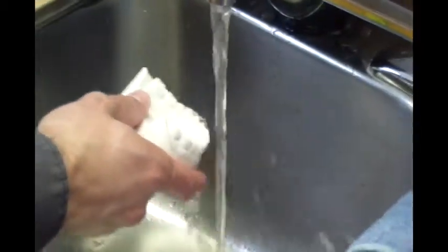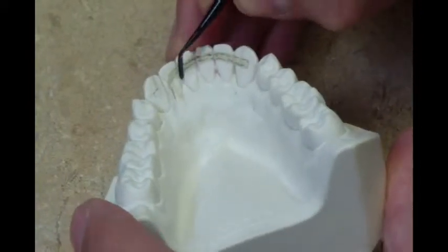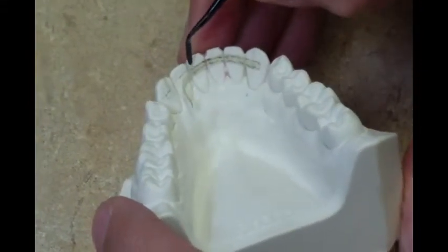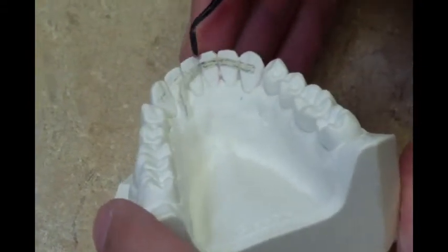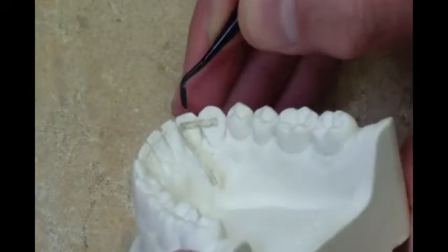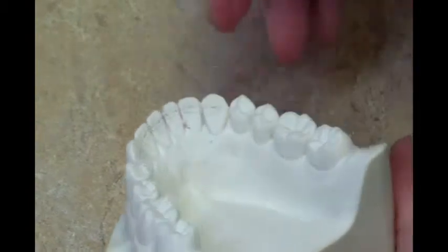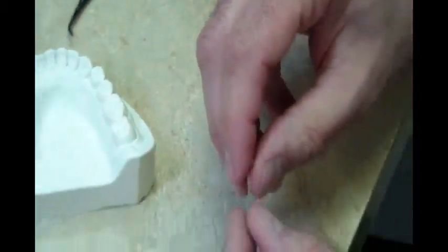As the wax strip on the model may have softened, it will be easier to remove if cooled. You may do so by running the model under cold water for a few seconds. Using an instrument, carefully remove the wax strip from the model. The wax will be used to measure the correct length of compressible fiber and should be kept with the silicone index. Both are now ready to be used at chairside.